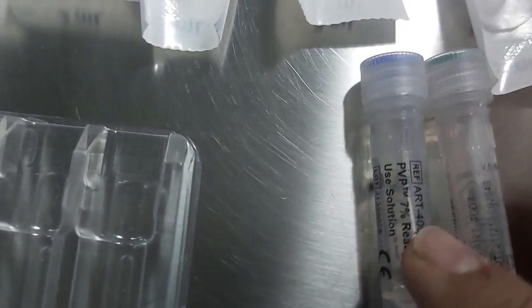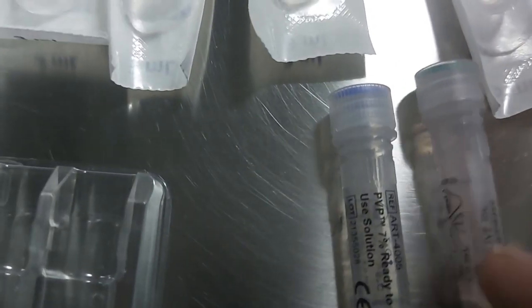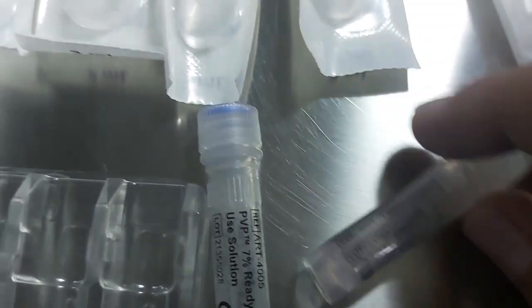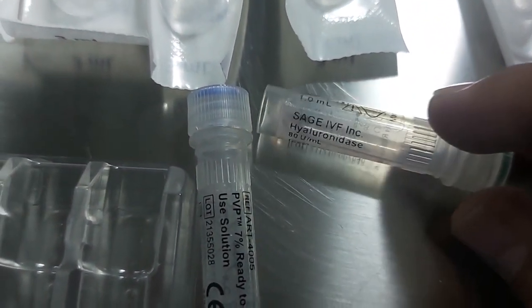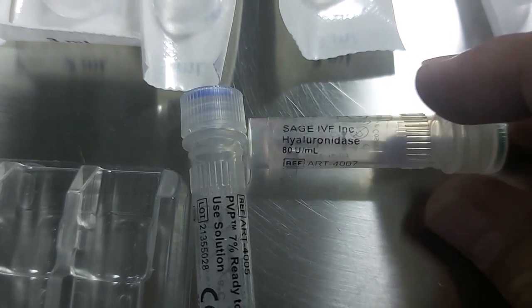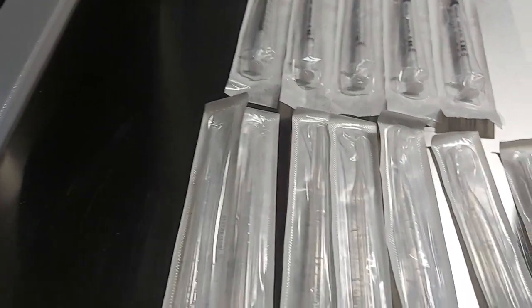This is BD syringe. This is PVP 7%. And this is Hyaluronidase. 1 ml. So now we will start making plates.